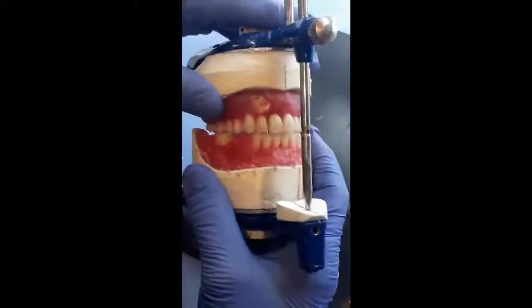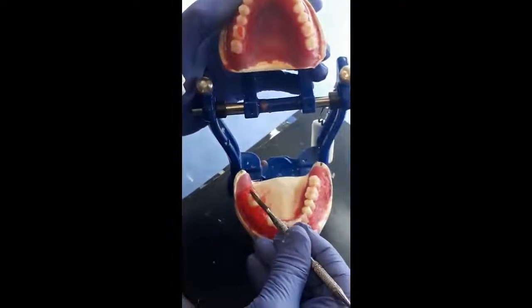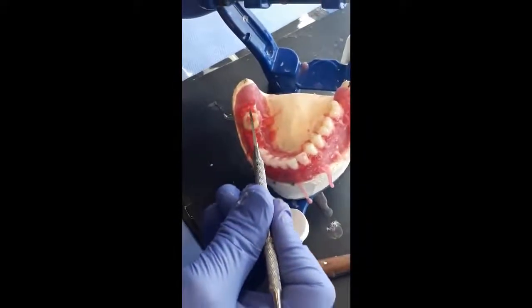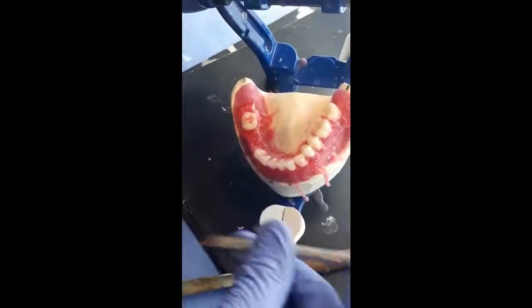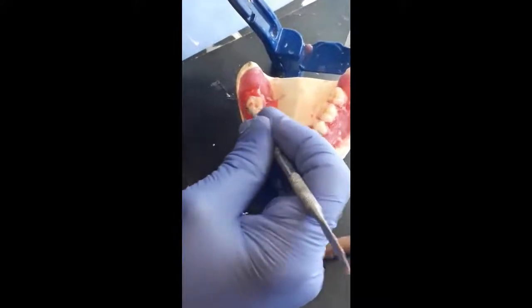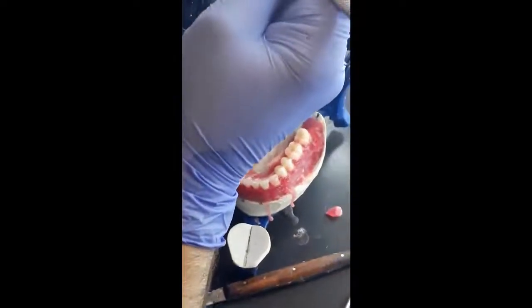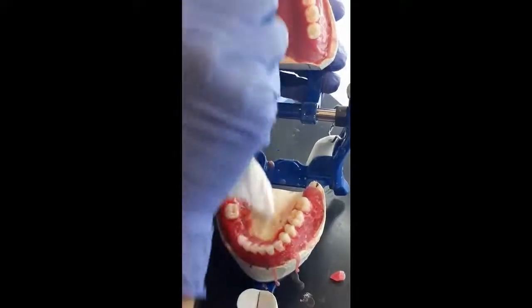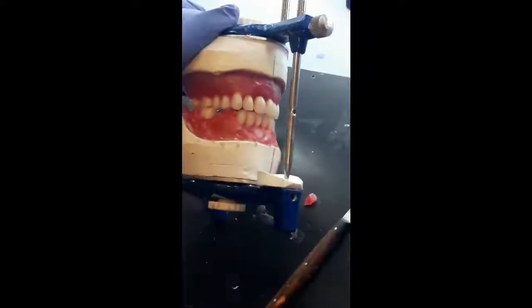you can feel it's cold, we can open the articulator and you can see that it occludes perfectly, and the central groove comes within the line indicating the crest of the ridge of the mandible. We clean now this wax, we no longer need it, we can use a piece of gauze to clean it. Okay, and we can see that now it occludes perfectly in its position.